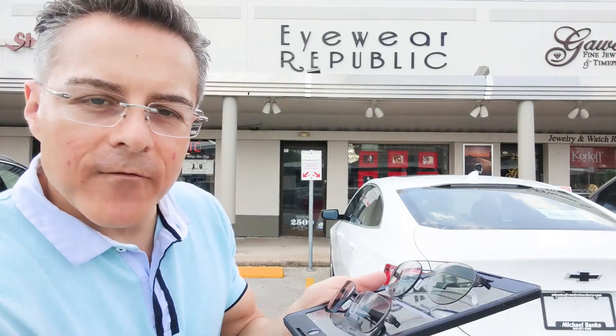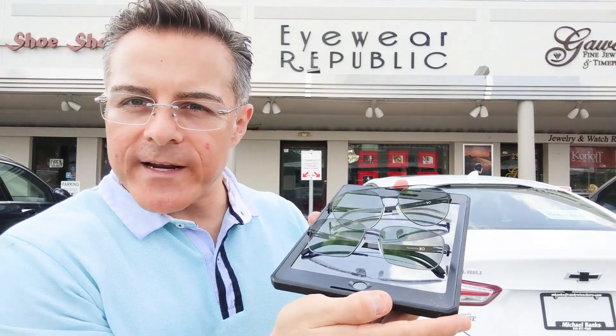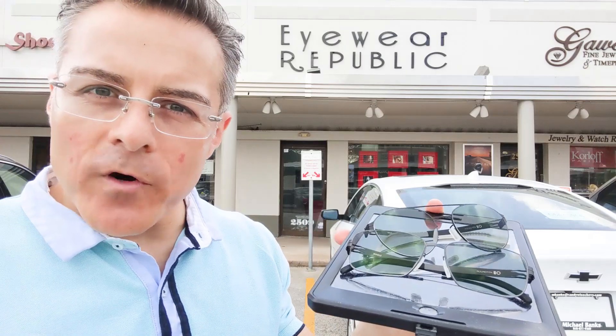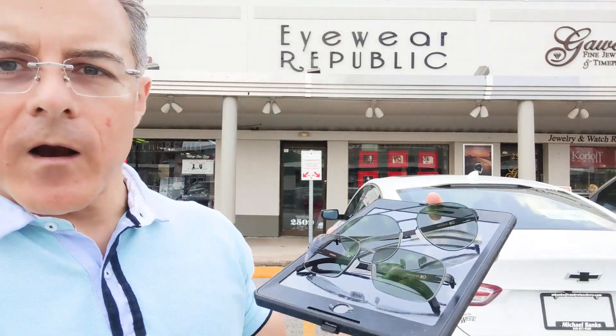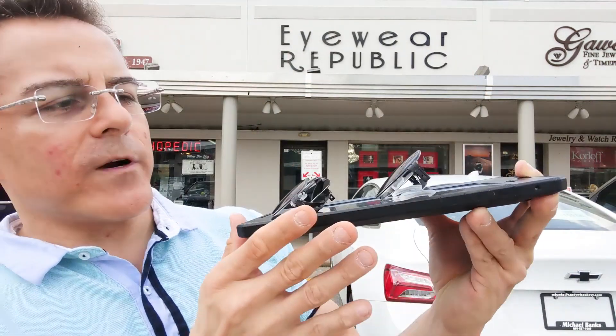The test starts right now. I've already hit start and they started getting dark. Historically it's been around 45 seconds, and right now we're at about 14 to 15 seconds. They're getting pretty dark pretty quickly — we're at 30 seconds.